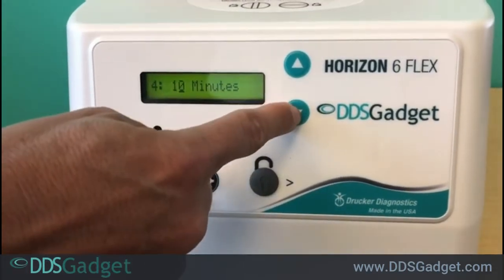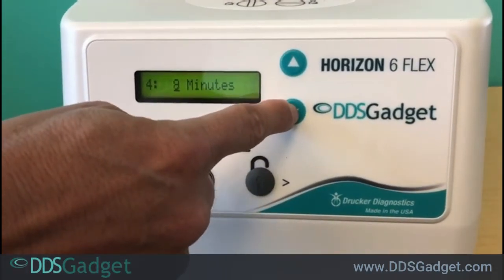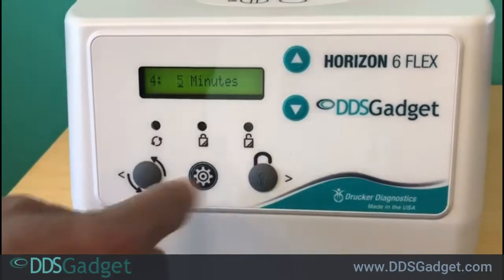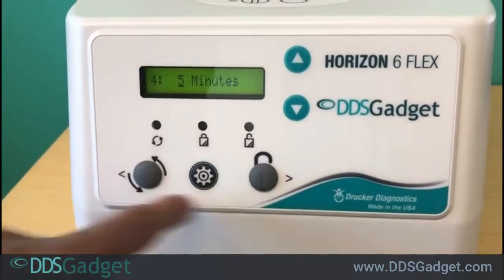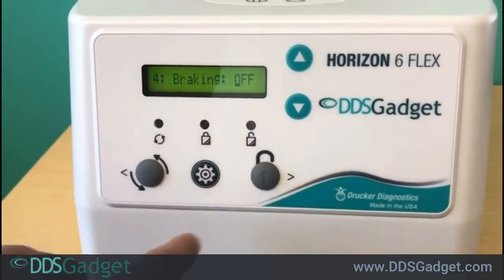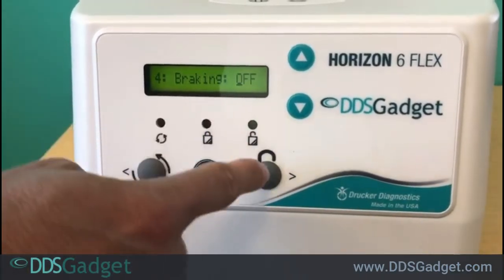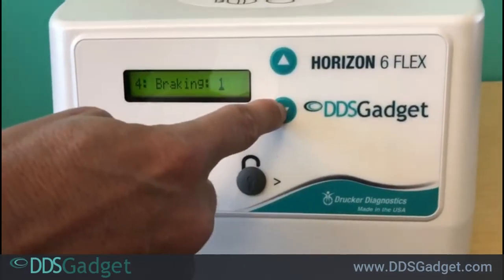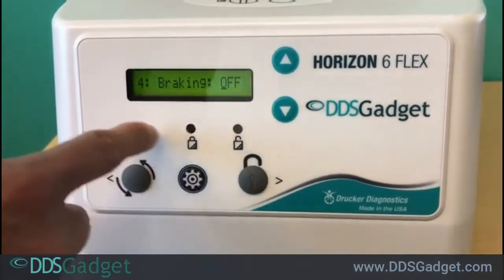So we put in 2400 RPM and it tells you that. Then we move to the minutes — we want to move it down to five minutes using the arrow, so we set it to five minutes.